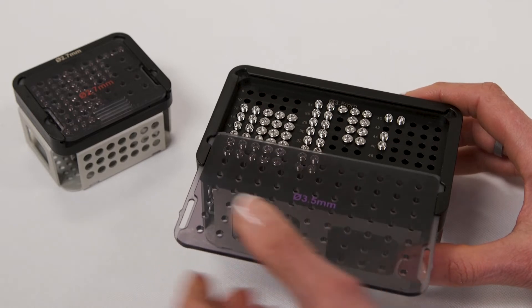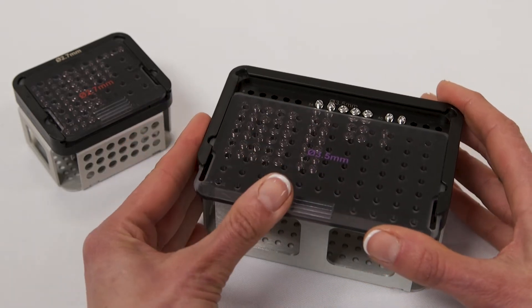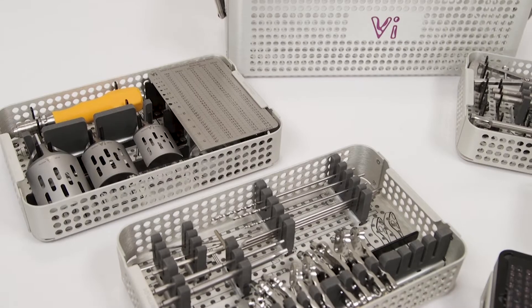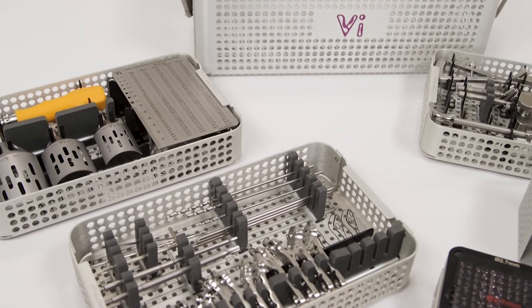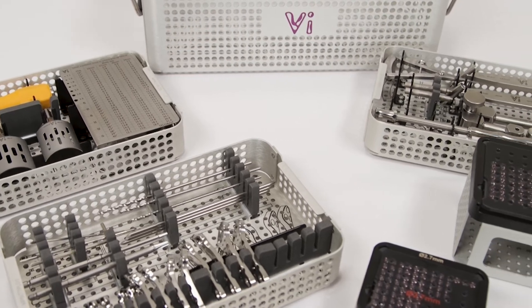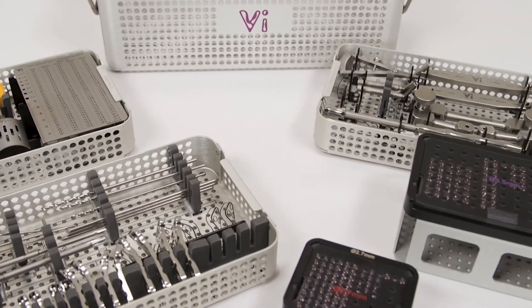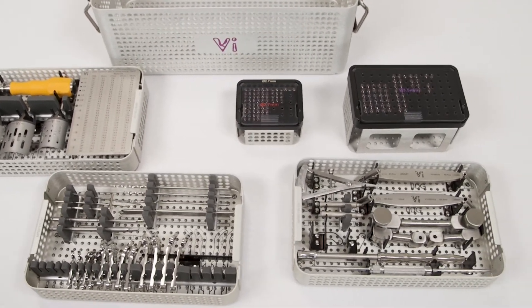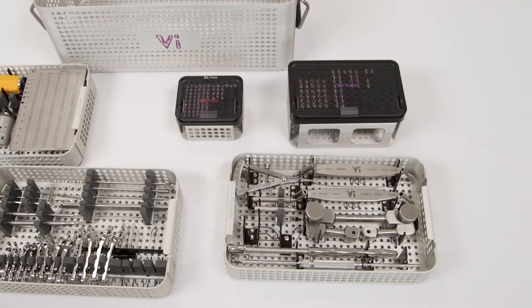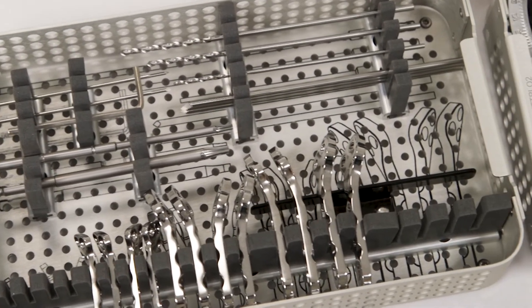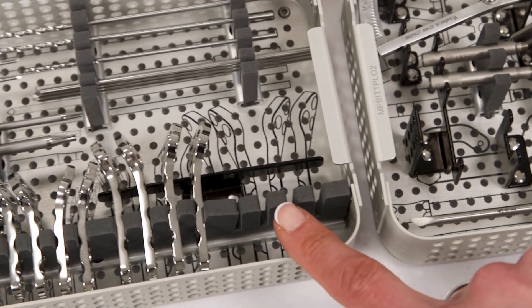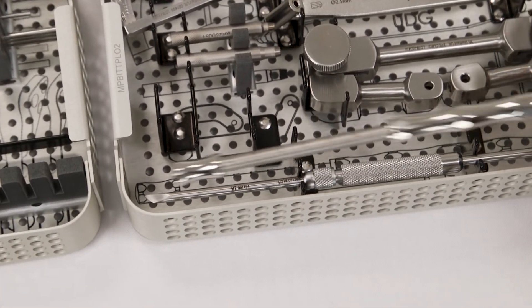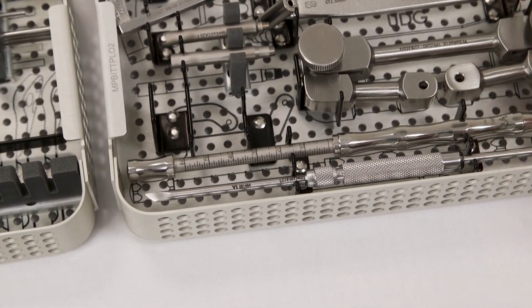Both the caddy itself and the clear plastic protection sleeve are marked with the relevant screw size for easy identification. The protection sleeve ensures that screws are held secure during storage or transport of the kit. The modular plating box system components are manufactured in the USA using a combination of anodized aluminum, acrylic, and silicon to build a range of customizable kit configurations. The dividers in the instrument and plate trays are either silicon or nylon coated to ensure secure containment of the devices without risk of surface marking.